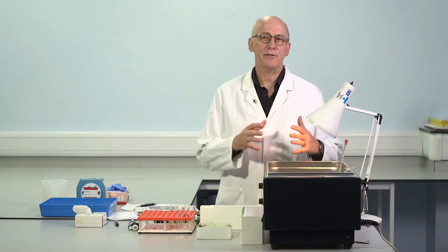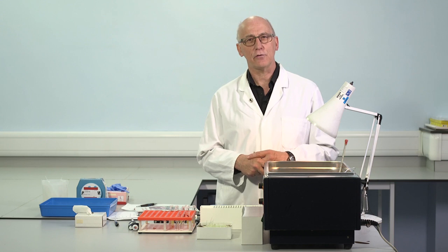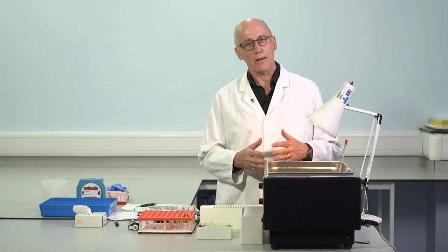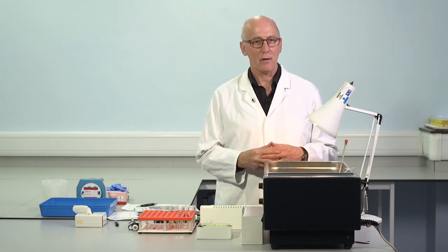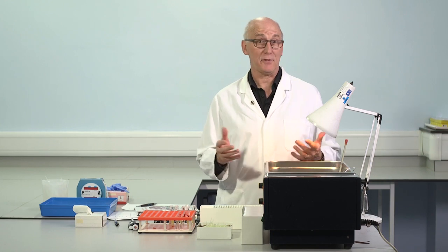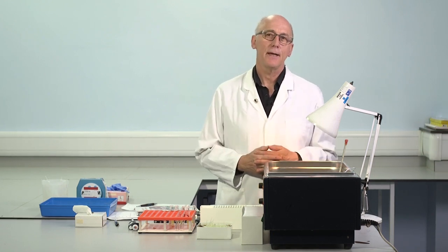And our intention was really to talk about the principles, the kind of pattern of results which are obtained in APPT, and really some of the ways to interpret these results, and to try and do something which you can take and make use of when you're working in your own centres. Actually, I think it's essential for all hemostasis laboratories to have available a water bath like this.